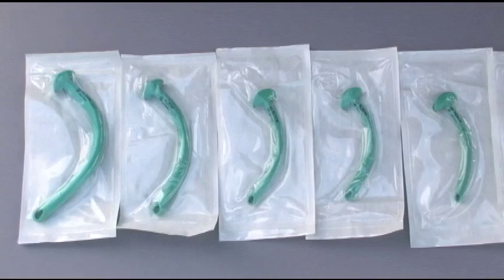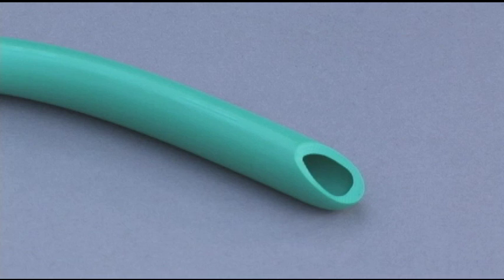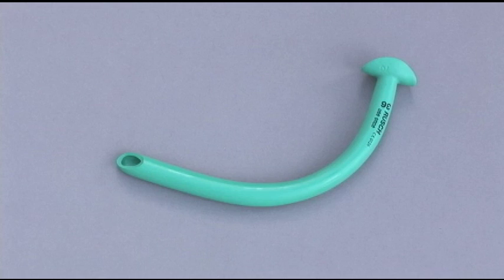The design of the NPA is unique. NPAs vary in length from 17 to 20 centimeters. The diameter ranges from 20 to 36 French. At the proximal end, a funnel-shaped projection and ring help prevent the tube from slipping inside the patient's nose. The beveled distal end makes it easier to insert the tube, while the airway's slightly curved design allows it to follow the natural curvature of the nasopharynx. When in place, the NPA rests between the tongue and the posterior pharyngeal wall, thus maintaining an open airway.